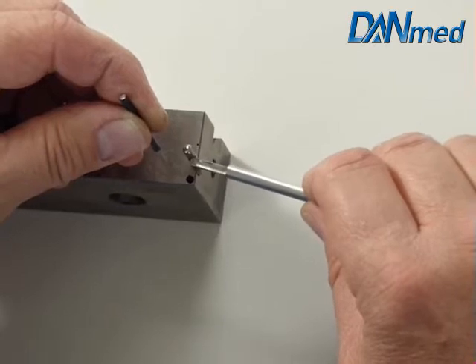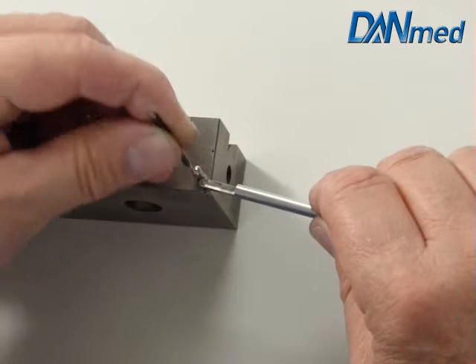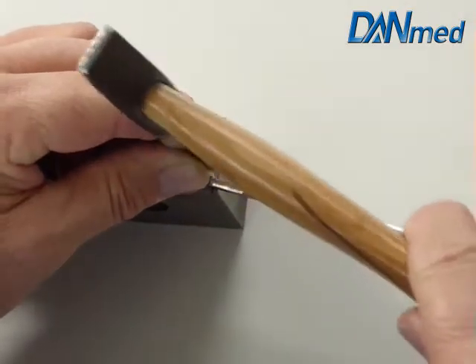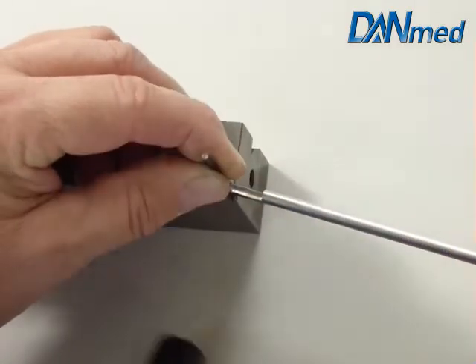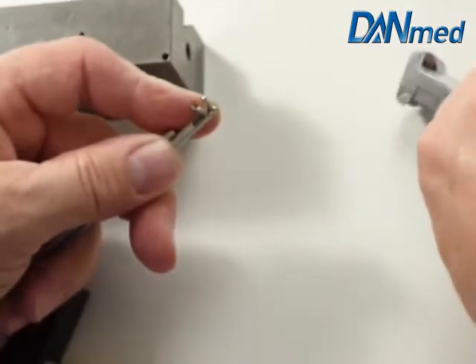It's an optical forcep. First we take the center pin out. Harold will do this. Take the pin out.